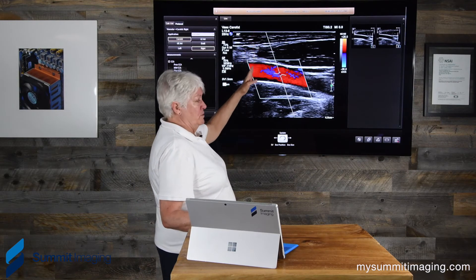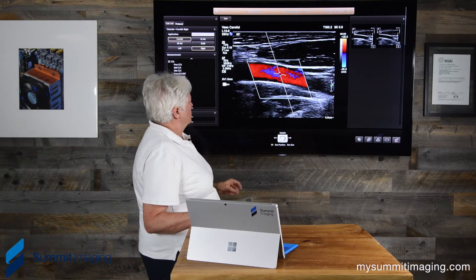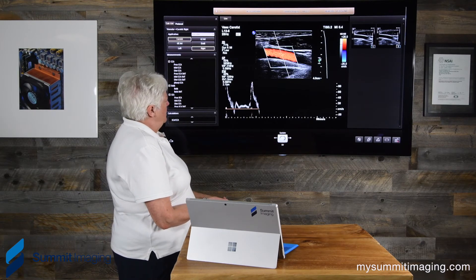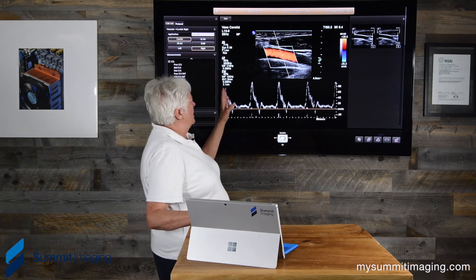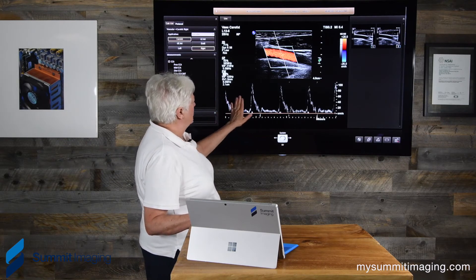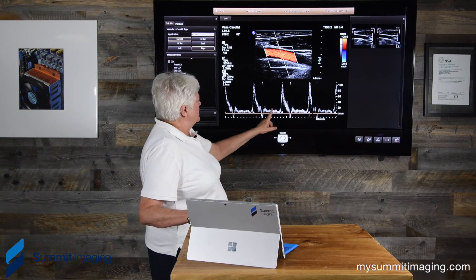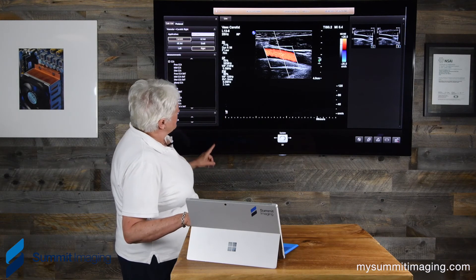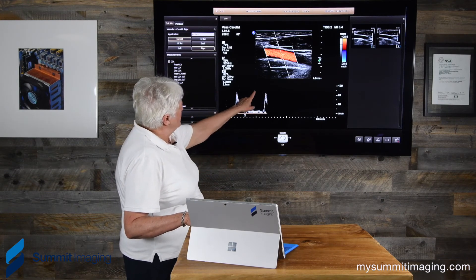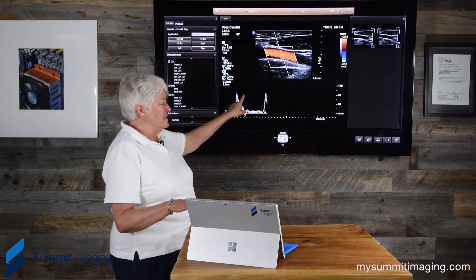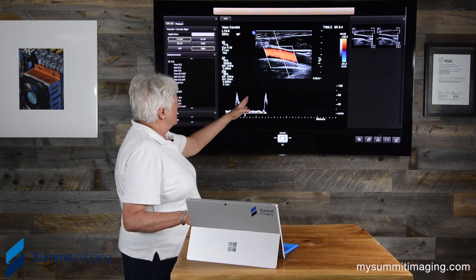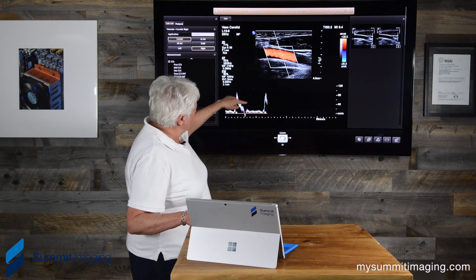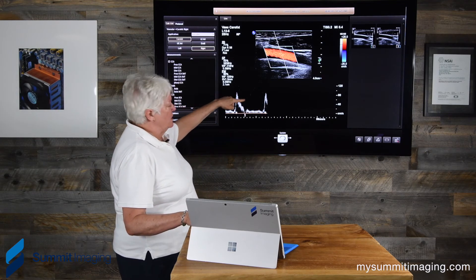We want to make sure it's filled, it's the appropriate color, and there are no dropout areas — areas where there's a line with no color, or a line where the color comes all the way through the soft tissue — that indicates a crystal issue. So let's see what happens when we go to pulse Doppler. We want the background to be black and the inside of the artery — the peak — to be black as well. In this image you can see there are echoes in here, and that is not desirable.